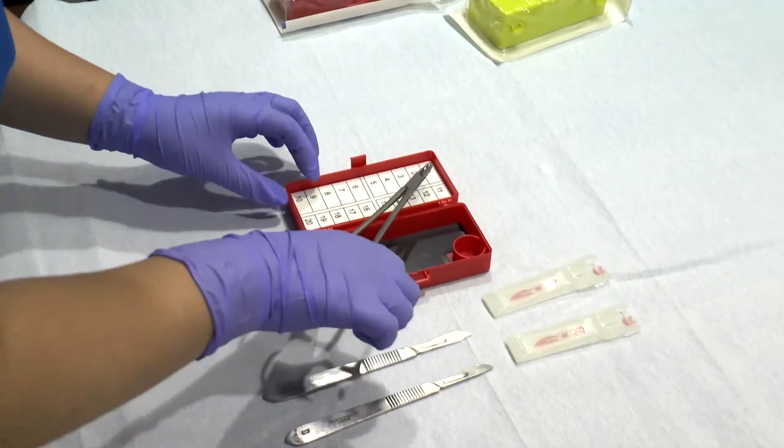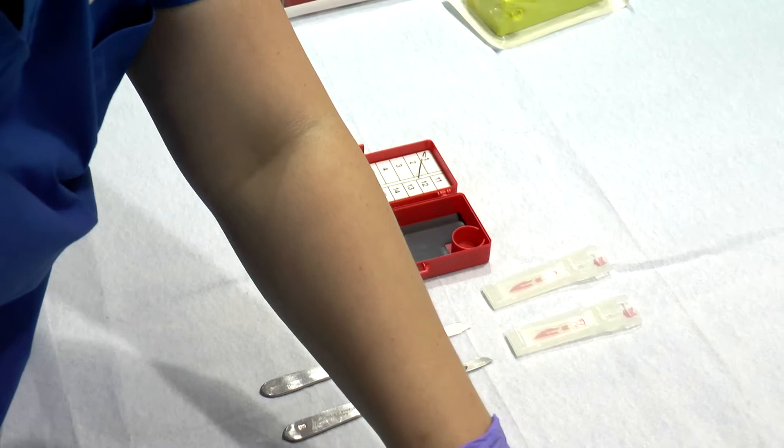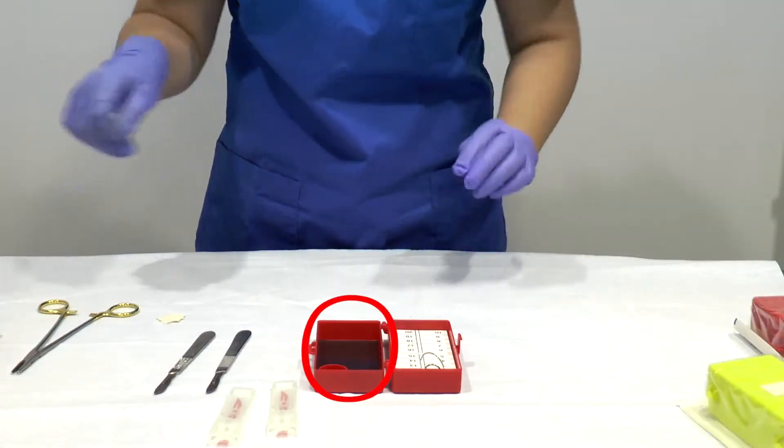Insert the used needles into the foam counter as needed. The blade needle system includes a magnetic surface which can be used to hold odd shaped sharps.